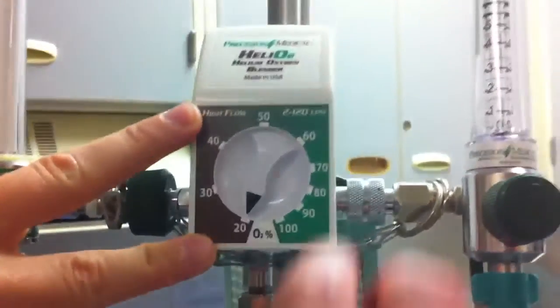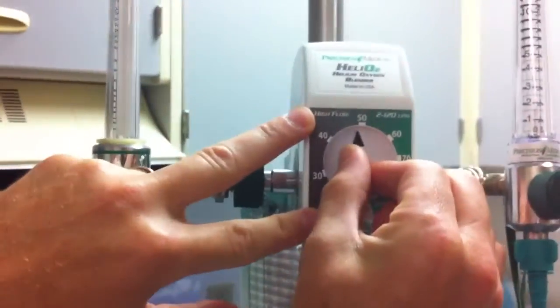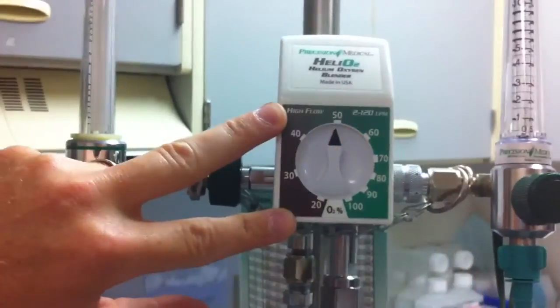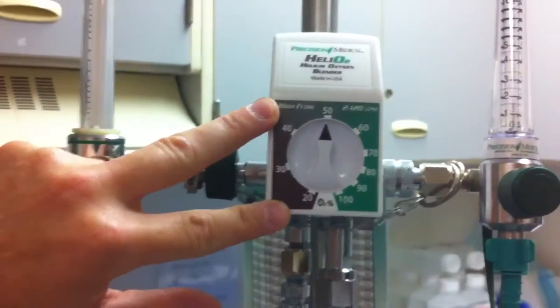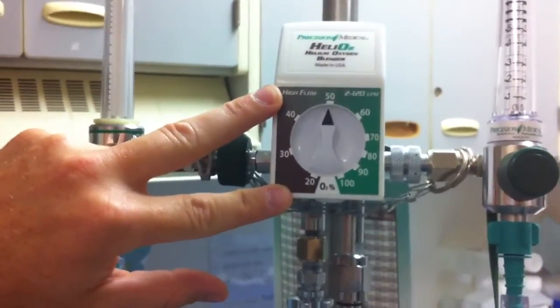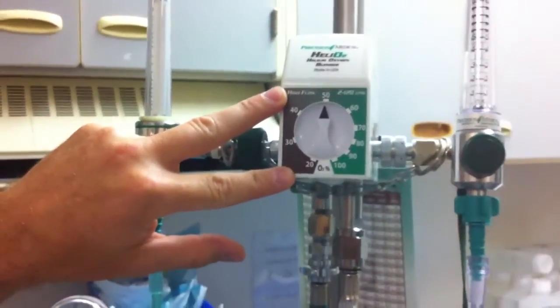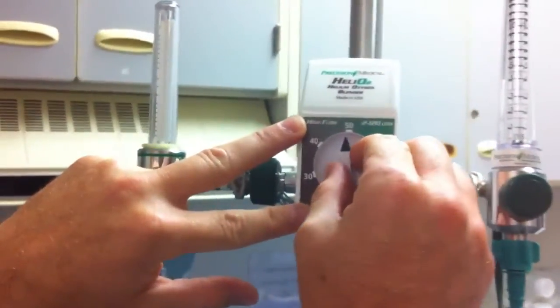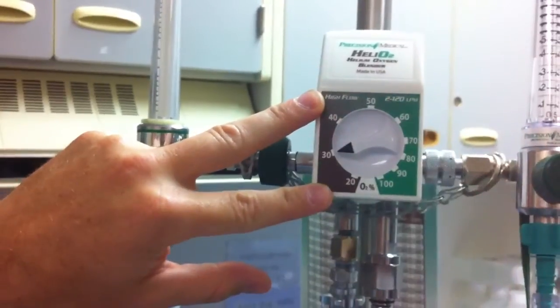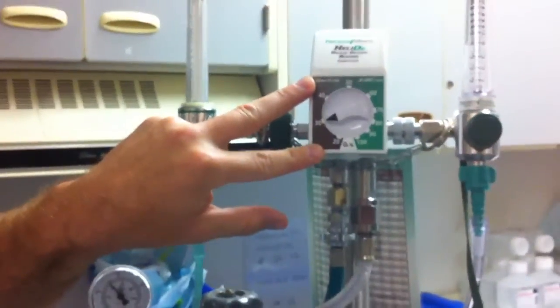The higher you go up — if I increase this to 50, you're entraining more oxygen and less helium or Heliox. And so you're really not making full optimization of your therapy. So you want to keep it in this area. Typically, we start off at about 30, which is a 70-30 mix.